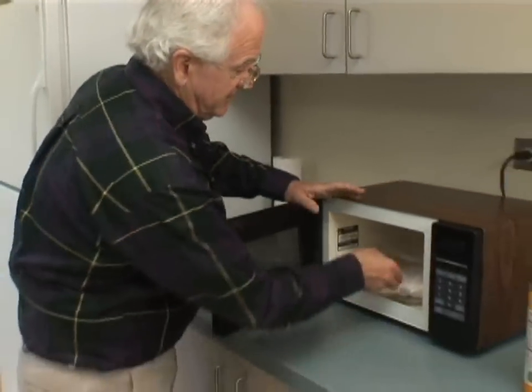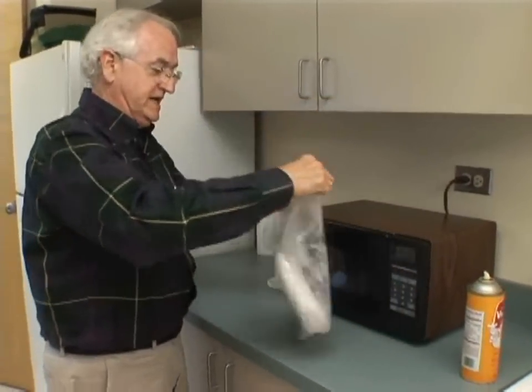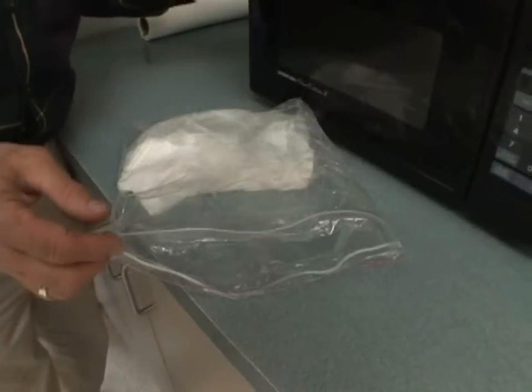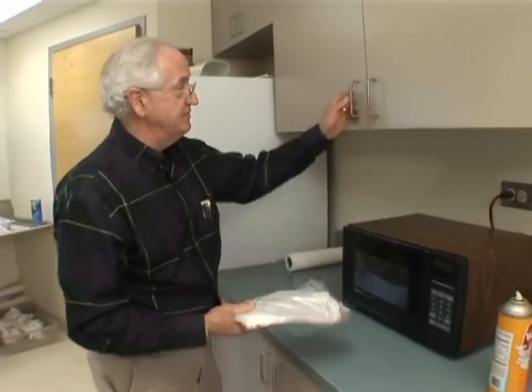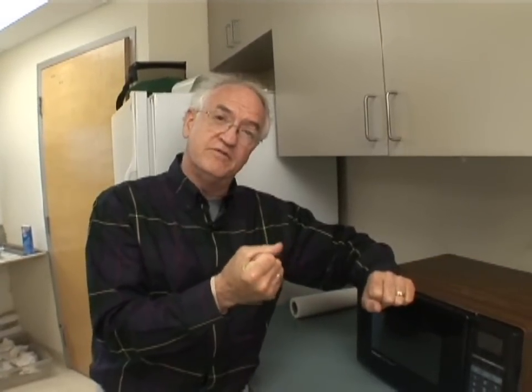Now that our microwave has finished its cooking cycle, when I take this hot bag out — and it's really hot — we have steam or heat sterilized that syringe. After it's cooled and the water has dissipated, you can fold this up and put it in a dust-free environment until it's ready to use. When you get these out, double check them to make sure all the parts are still working and that you get good draw through all the vacuum pieces.